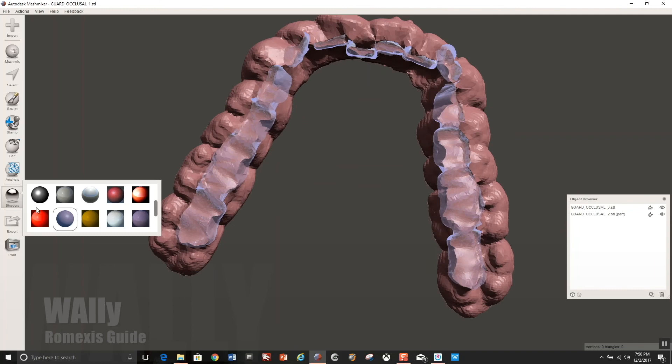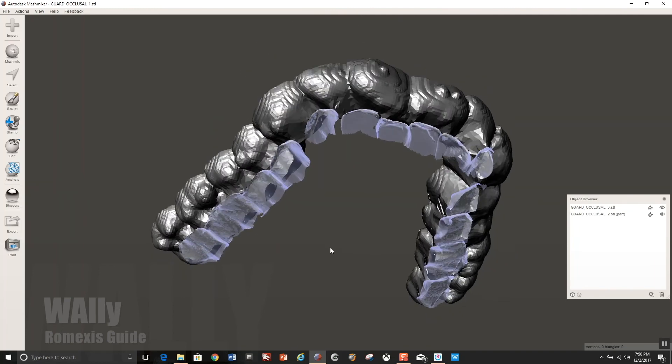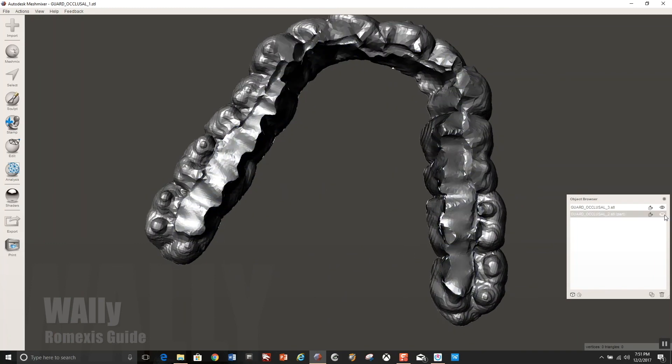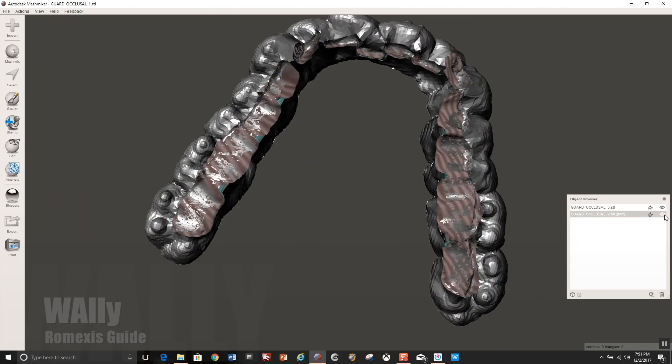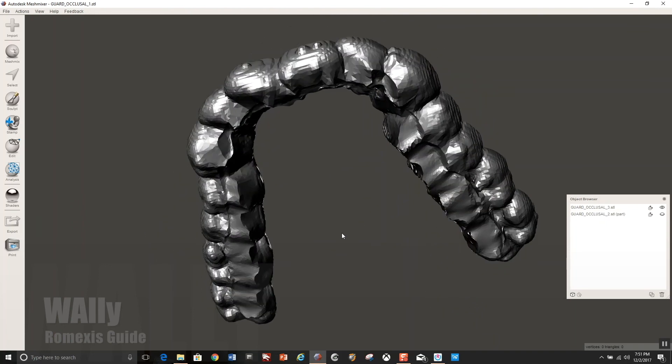Now what you'll see when I remove it, I'm going to change the color so you could see a little bit better. The shiny, let me take off the, see the shiny surface, the shiny flat surface, perfectly intermeshing with the mandibular occlusal table.